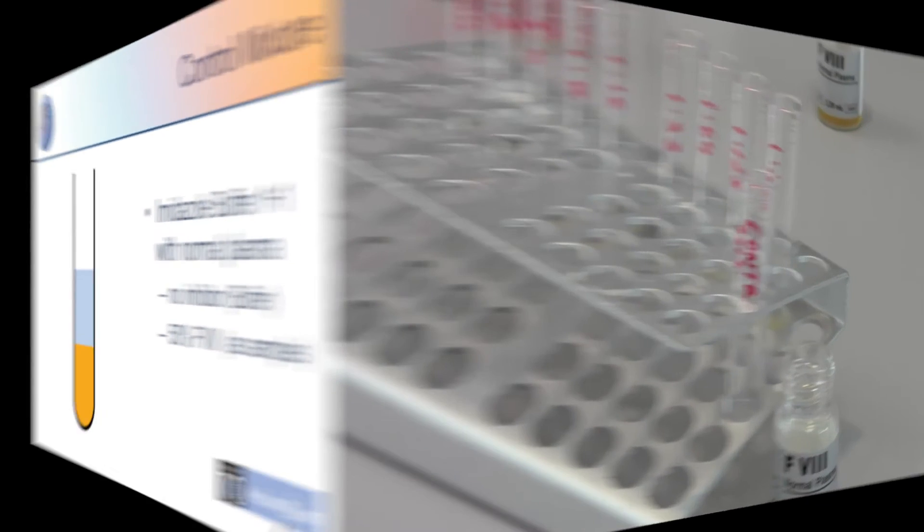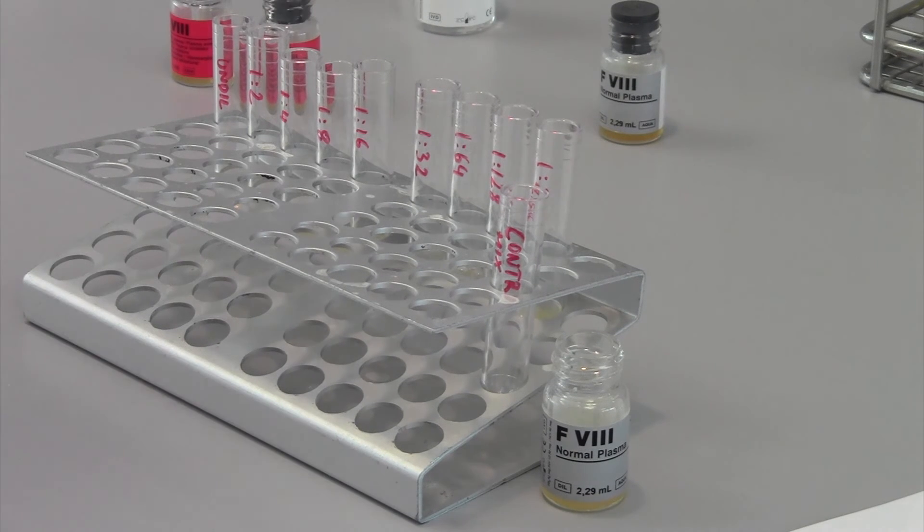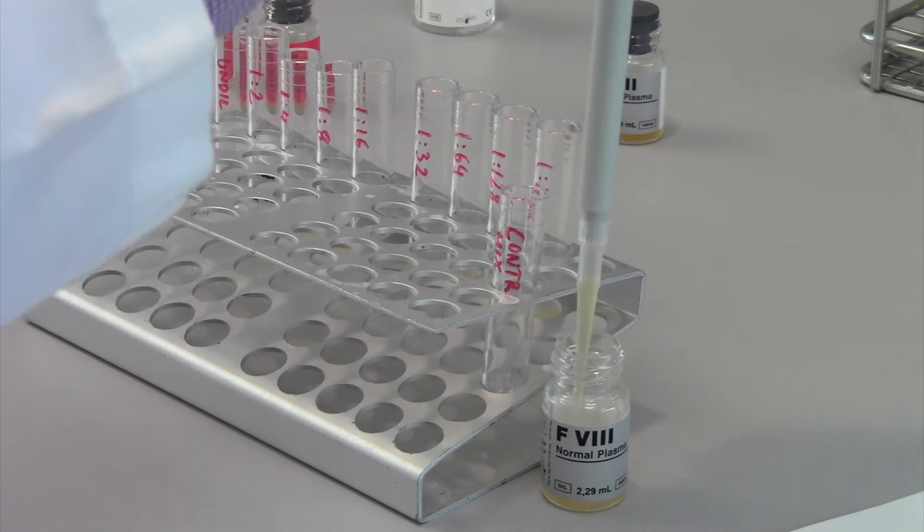As a final step, you need to add equal volumes of Factor VIII normal plasma and imidazole buffer to a new tube.